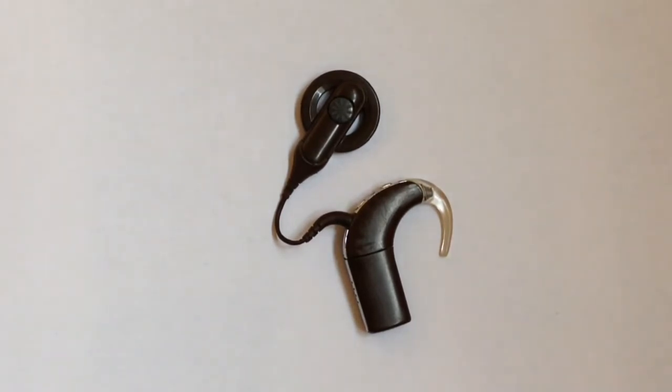This is based on personal experience. I do not know, maybe Cochlear recommends that you take it off every so often, I don't know. But based on personal experience, I do not need to take this off more than, I'm telling you, I think the last time I took it off for reasons that I needed to was a year and a half ago. So I just want to let you guys know.